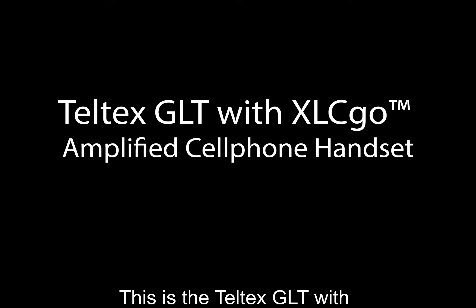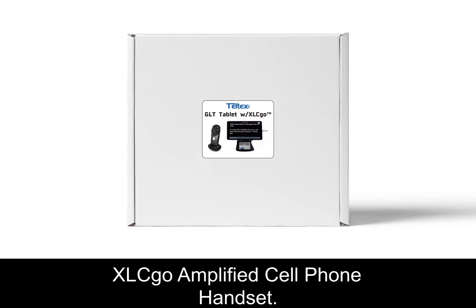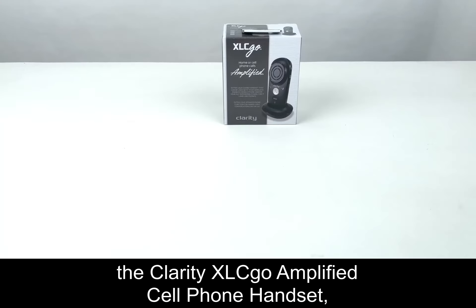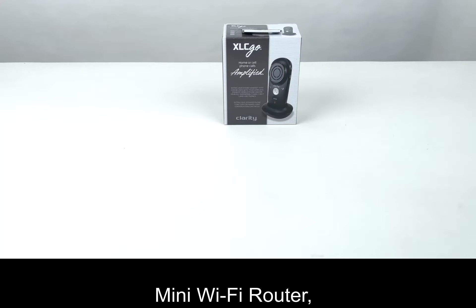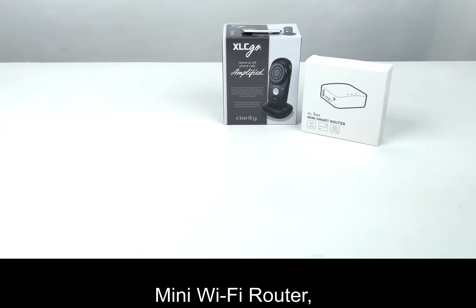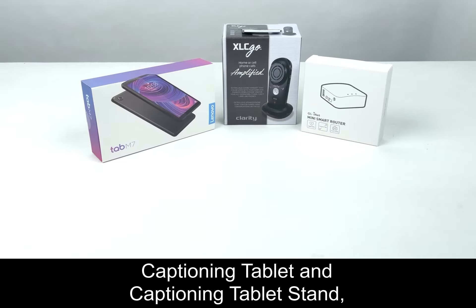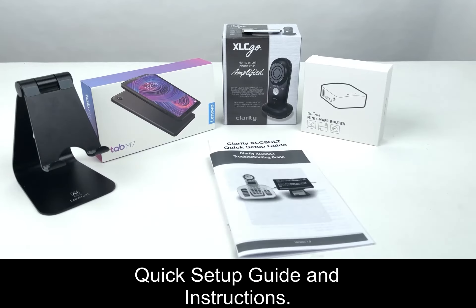This is the Teltex GLT with XLC Go Amplified Cell Phone Handset. The Teltex GLT with XLC Go includes the Clarity XLC Go Amplified Cell Phone Handset, Mini Wi-Fi Router, Captioning Tablet and Captioning Tablet Stand, Quick Setup Guide and Instructions. Step 1.